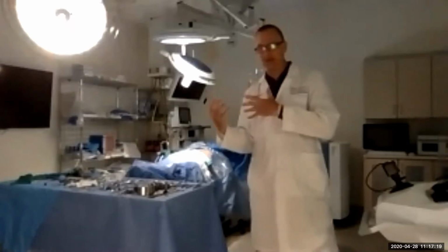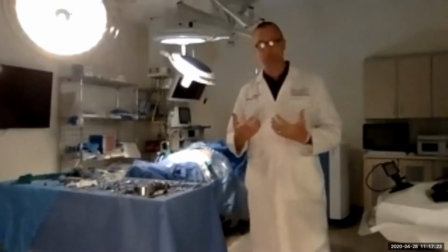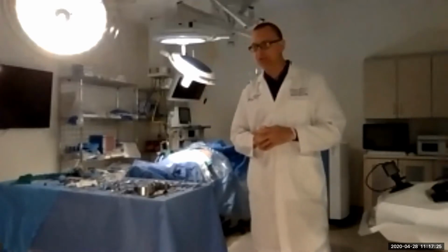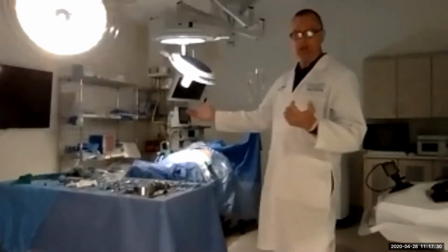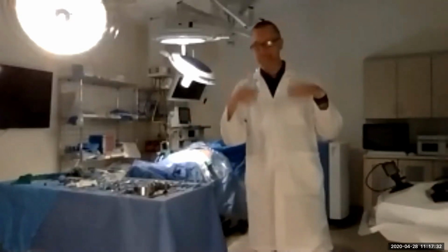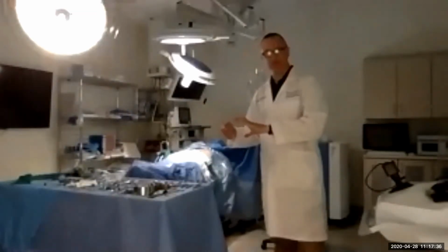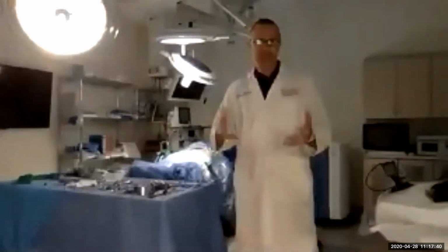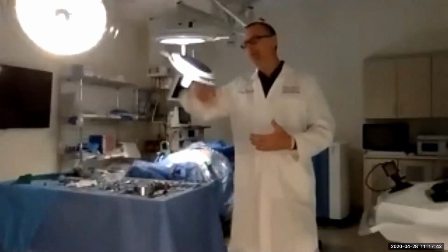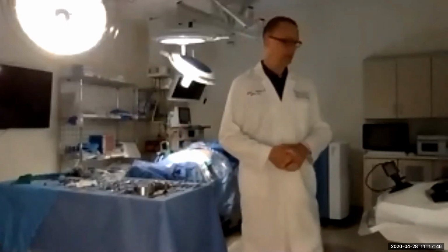So we can run scenarios here for a pretty sick patient, have our students work through those problems as they want to. We use it in various ways, sometimes very simple ways, like we don't even have the mannequin on, but they've got to come gown and glove, not contaminate the field, and then throw some sutures on a laceration that we would create. And so that's a simplistic use of this, but we could be much more complicated depending on exactly what scenario we wanted to run.